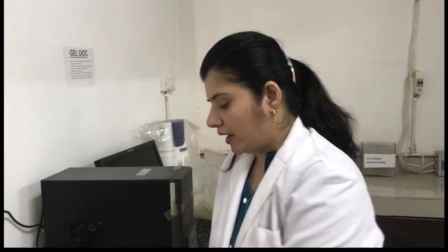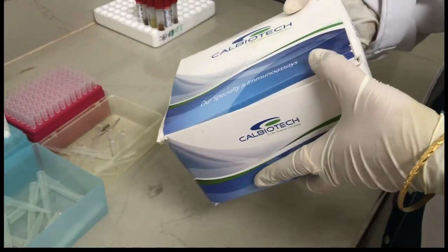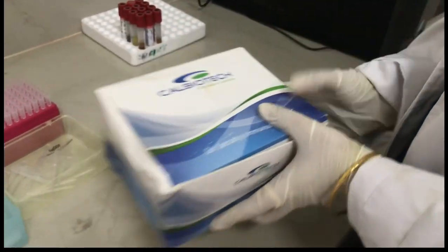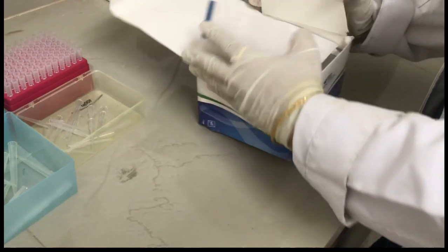In the demonstration of ELISA, here we are going to show you the ELISA on TSH. Now as you can see, this is a kit of ELISA. Here it is TSH kit. This comes in a whole packing. When we open it, this is the material of the procedure.